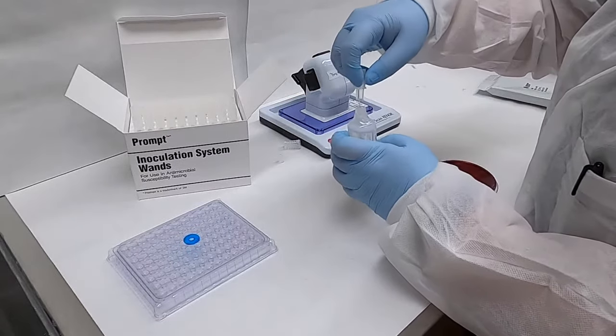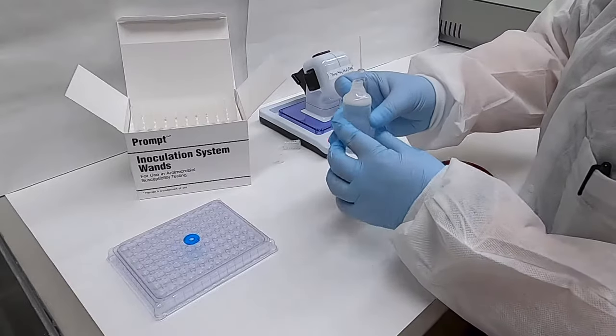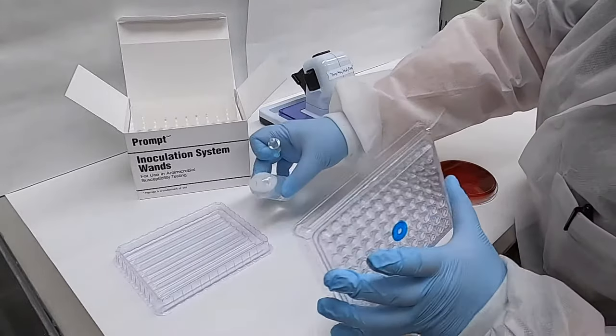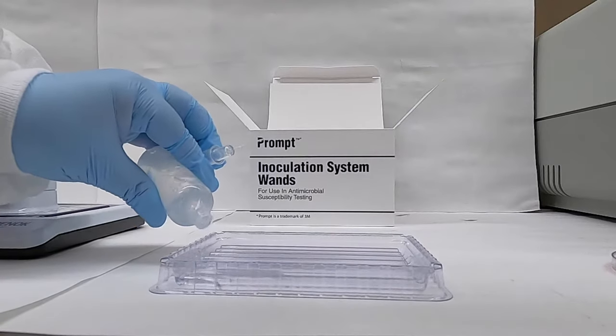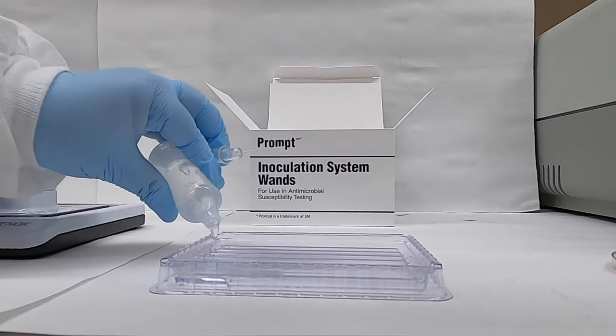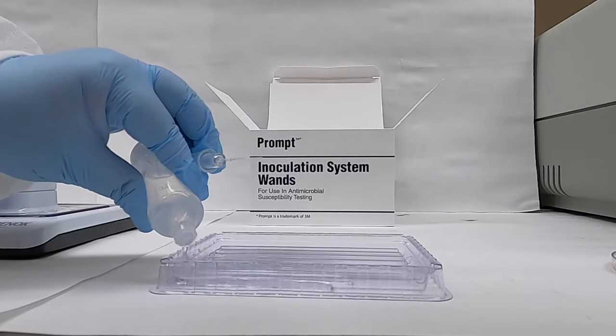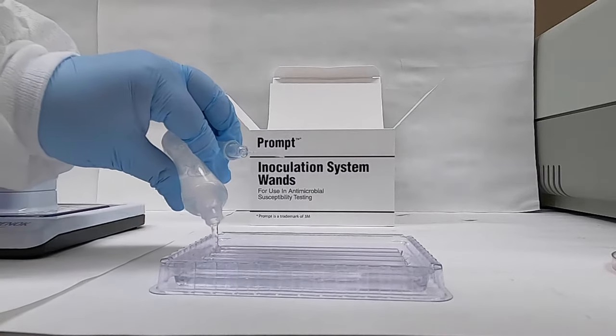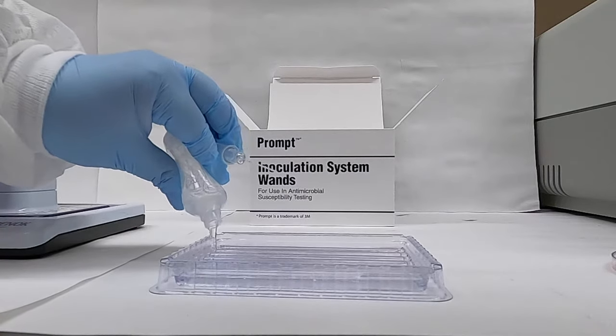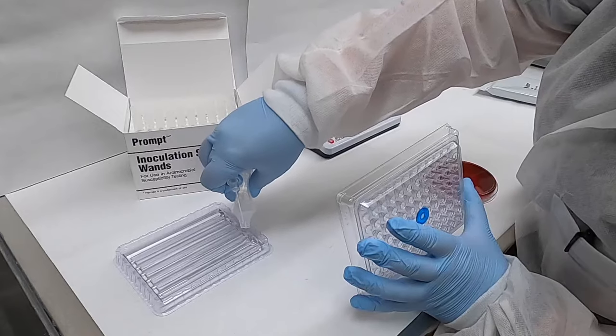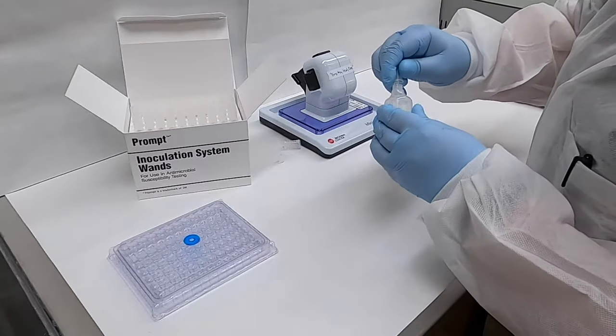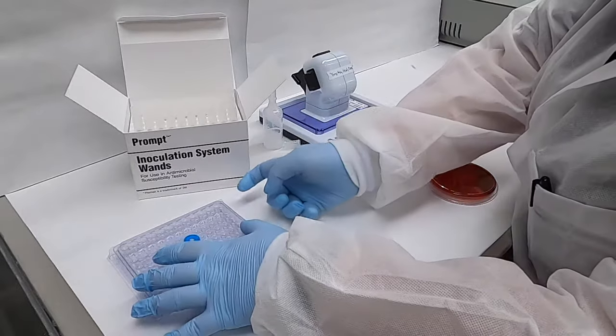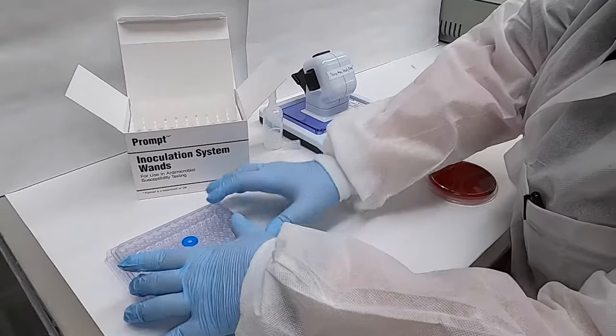Our broth is then carefully transferred to the reservoir of the dispensing device to avoid the formation of bubbles within the system. The lid is replaced and then we gently tap on the four corners of the device to break surface tension within the system.